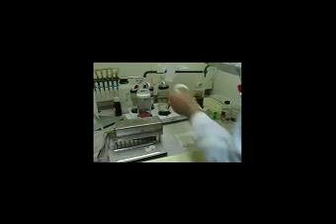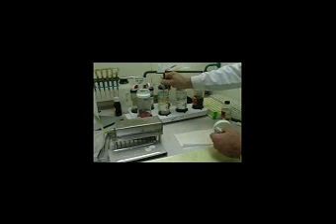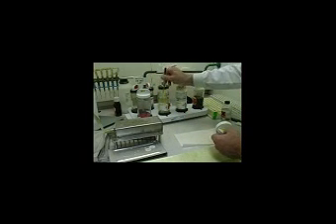Chromatography is one of the methods used to show metabolites of drugs of abuse in urine. The position and colour of the spot on the paper chromatogram here can be compared to known standards and the reference library of cards.